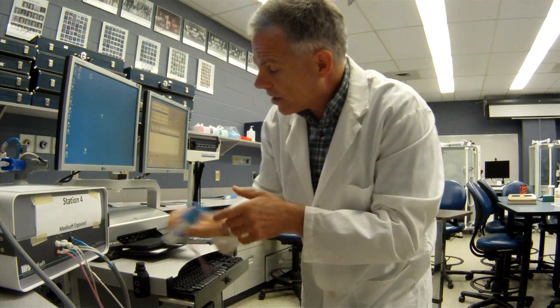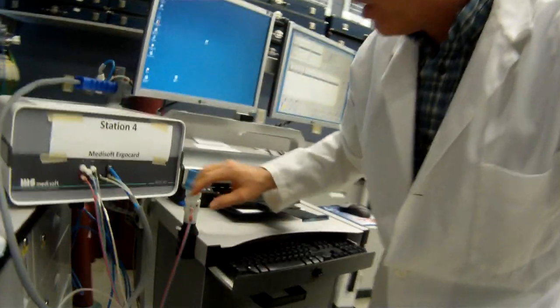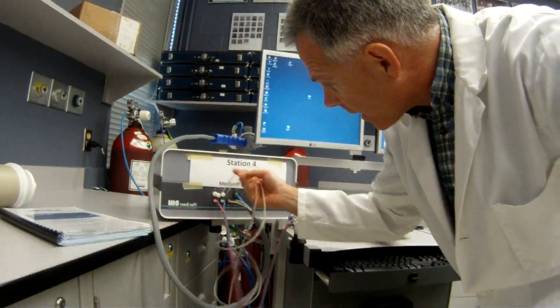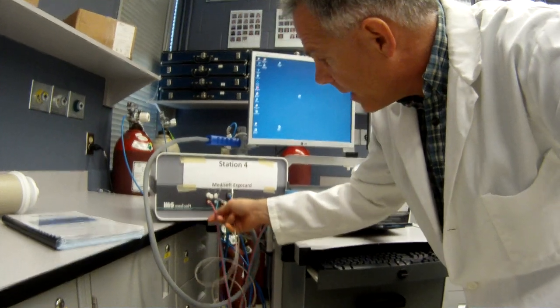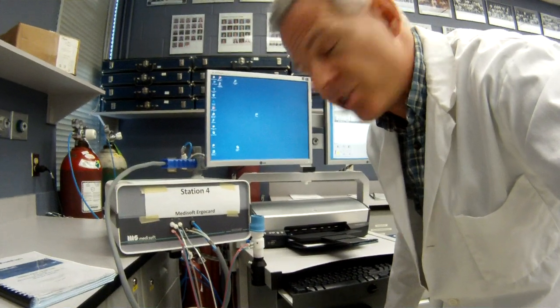So here's our little pneumotac. I just got a little safety spot to hold that there. And those tubes hook up here right into the ErgoCard. And it's important they're color coded to make sure that the pitot tube is working correctly. And we're going to calibrate that in just a second.